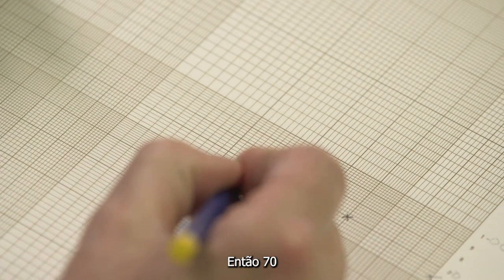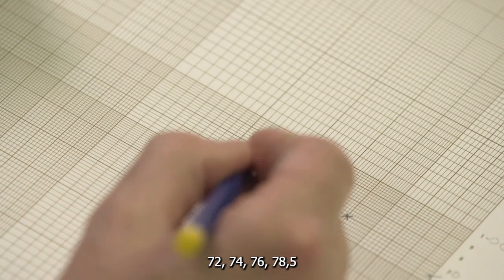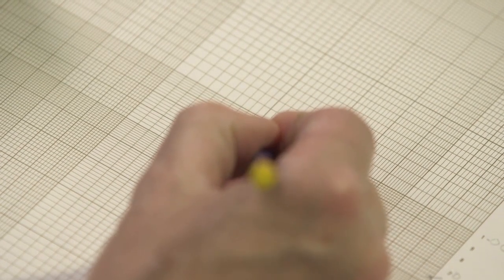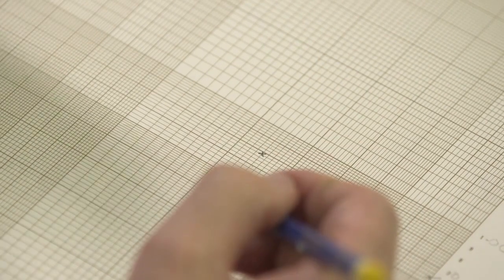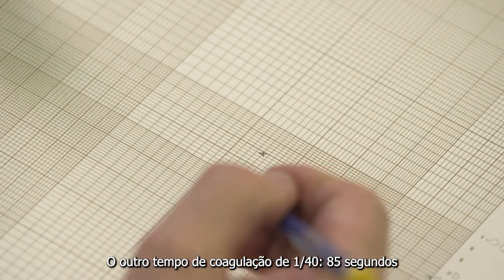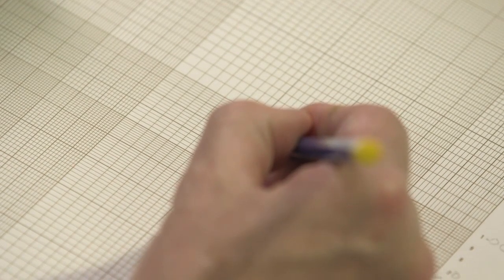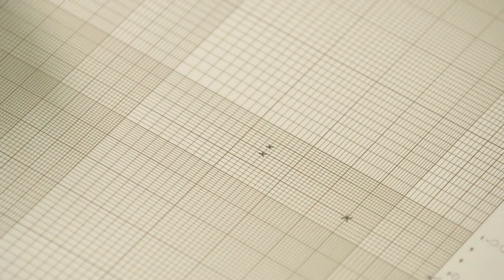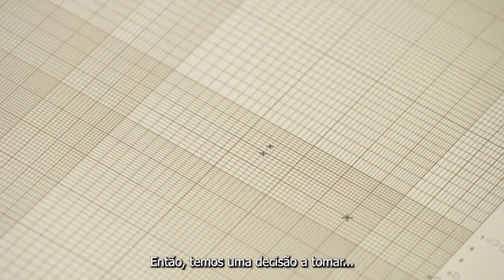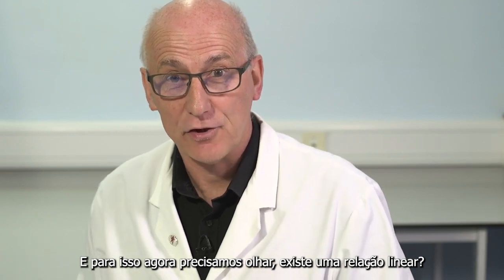So 70, 72, 74, 76, 78.5 could be here. On the other hand, the other 1 in 40 clotting time, 85 seconds. 80, 82, 84, 85. So we have a decision to make. And for this we now need to look, is there a straight line relationship? And that's where we need the ruler.